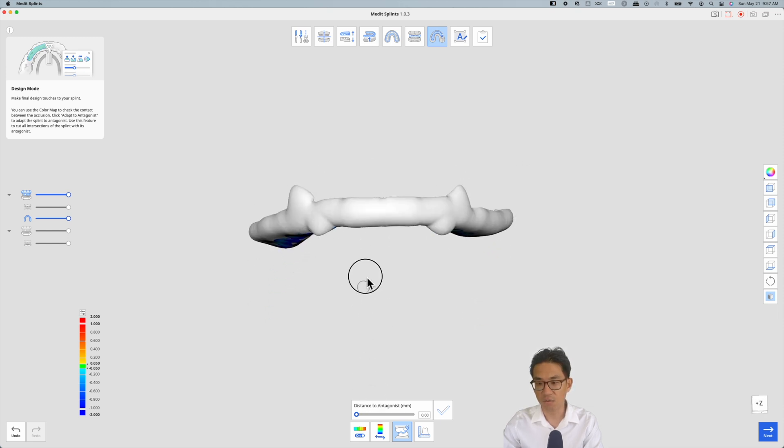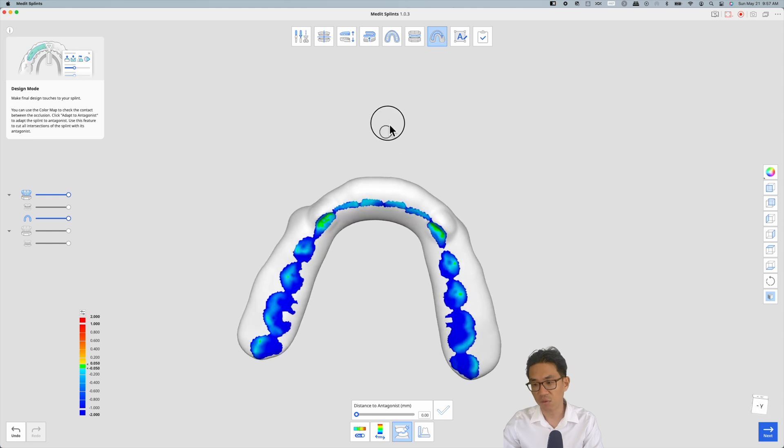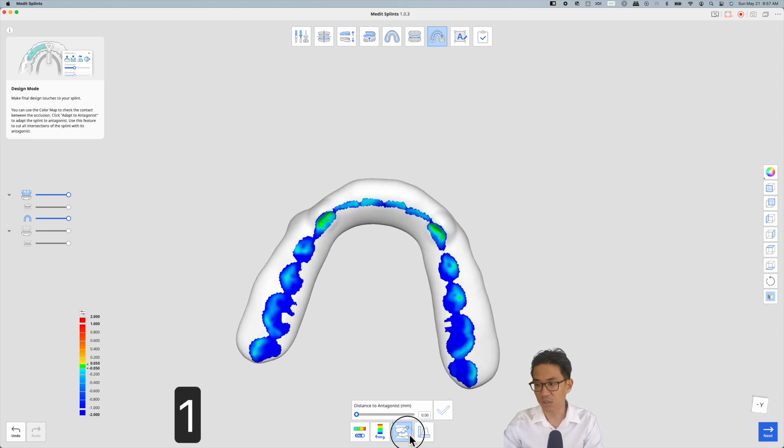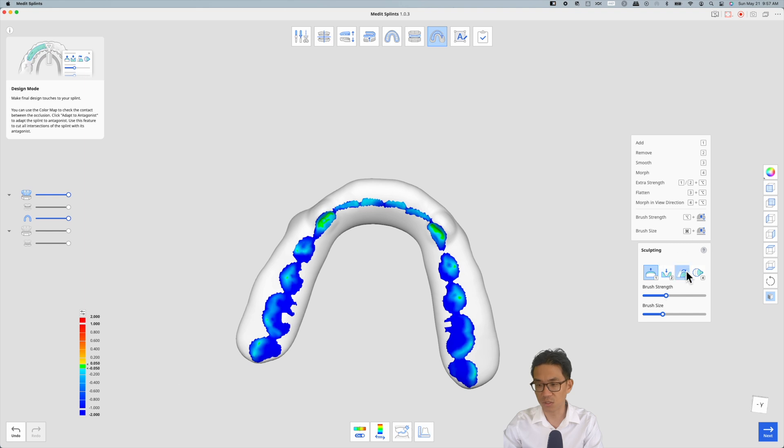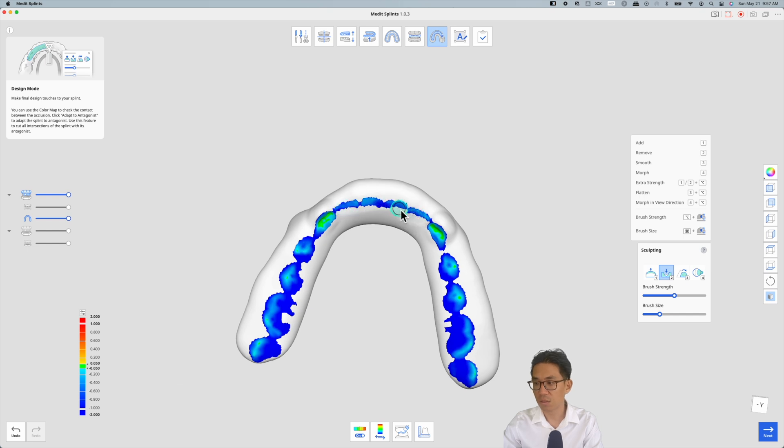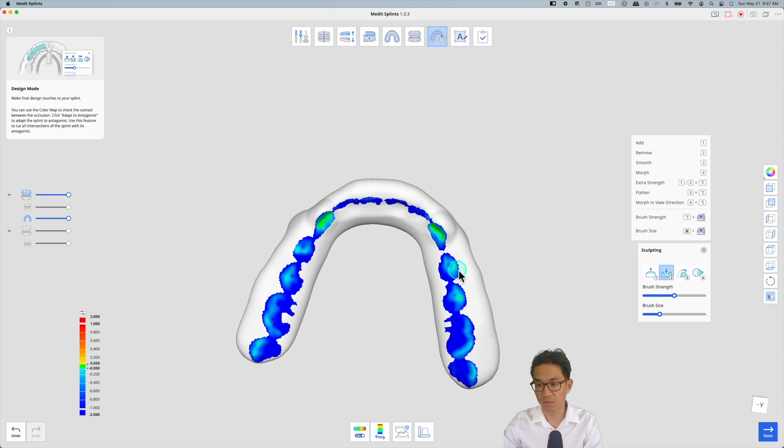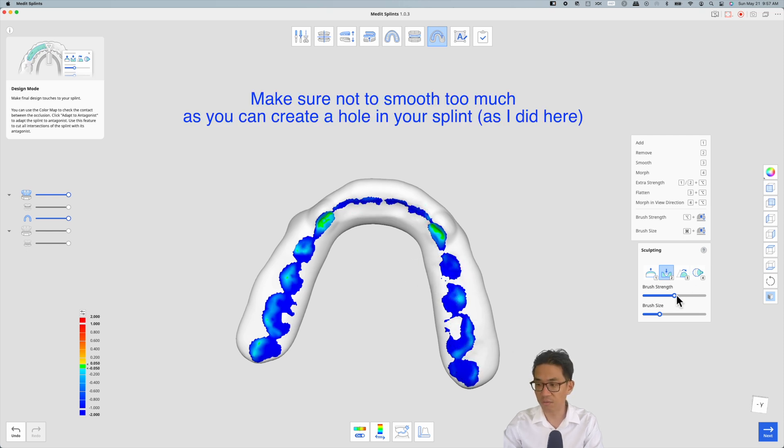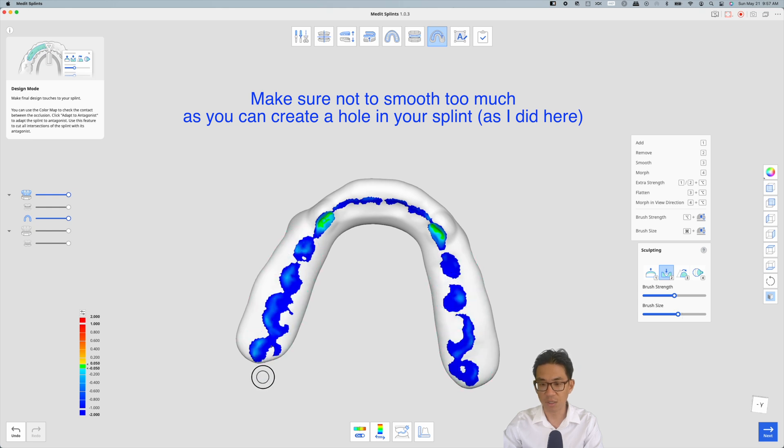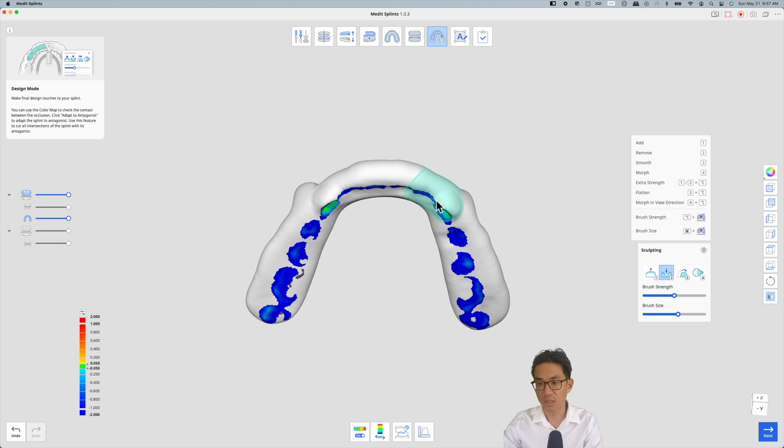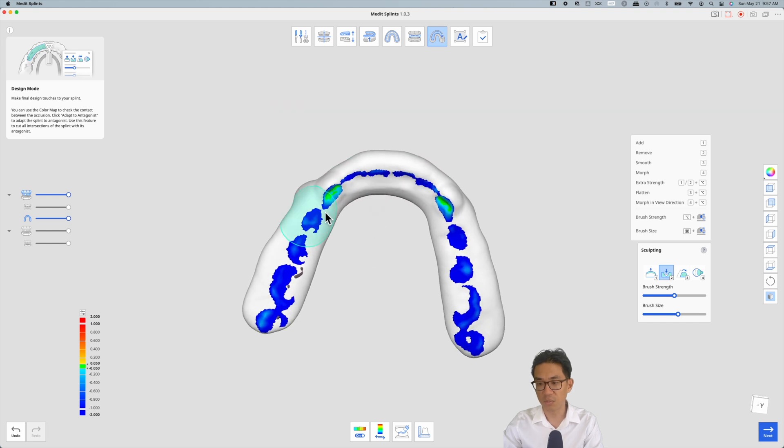Other options as well, you can just use these tools to smooth out or remove certain areas. Let's say lighten this area or lighten the posts here. There's a lot of utility to this app here. It tells you exactly how much contact is in certain areas.